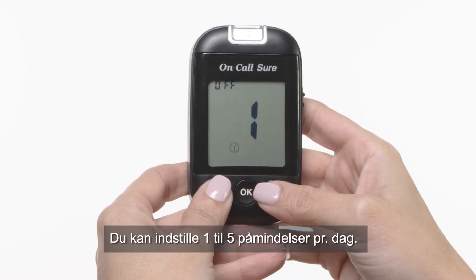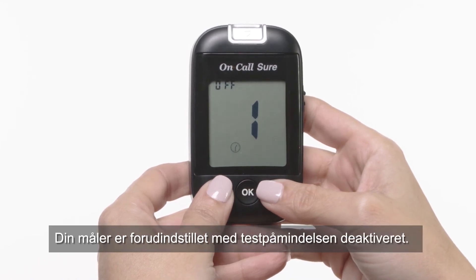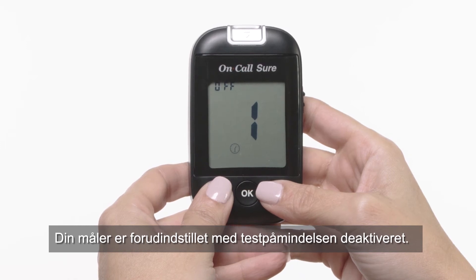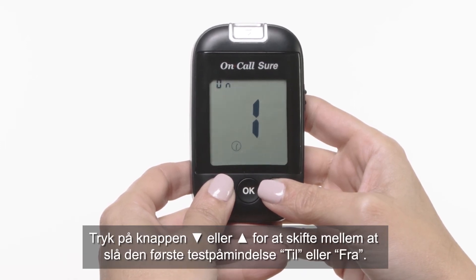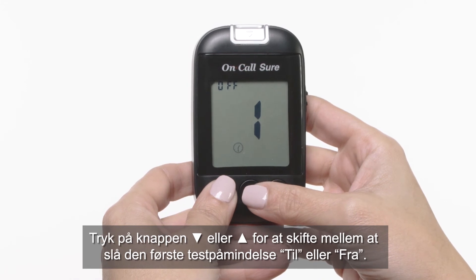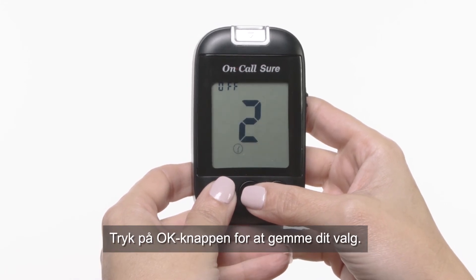You can set one to five reminders per day. Your meter is preset with the test reminder disabled. Press the down or up button to switch between turning the first test reminder on and off. Press the OK button to confirm your selection.